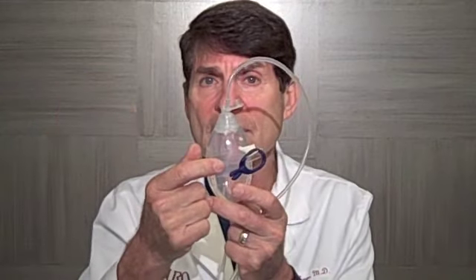You empty the bulb by squeezing the fluid out into any kind of a cup and measure the volume. The volume is easily seen and recorded on the bulb.